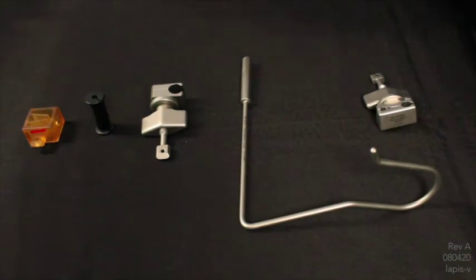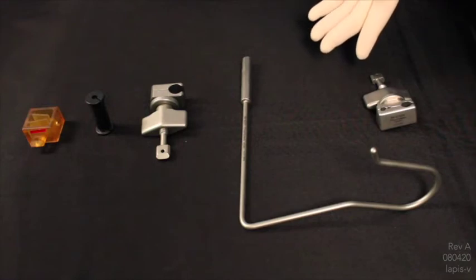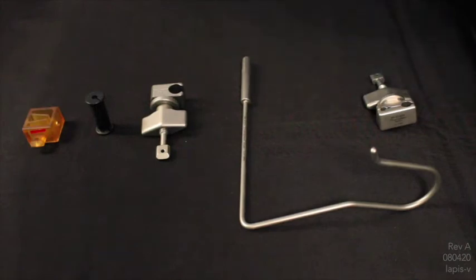The laparoscopic articulating arm and flexible laparoscopic holder may be used with any of the attachments shown below. The duo head holds the laparoscopic instrument firmly in place, ideal for instruments 3, 5, or 10 millimeter in diameter.